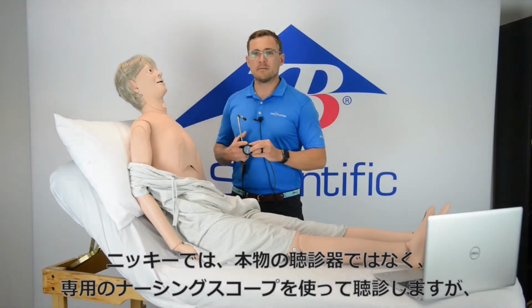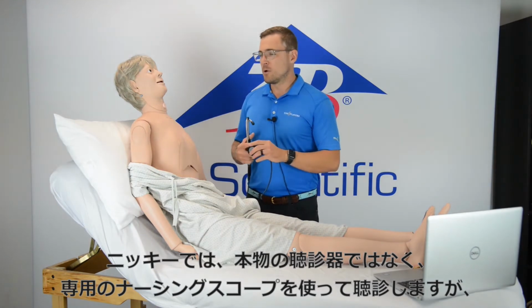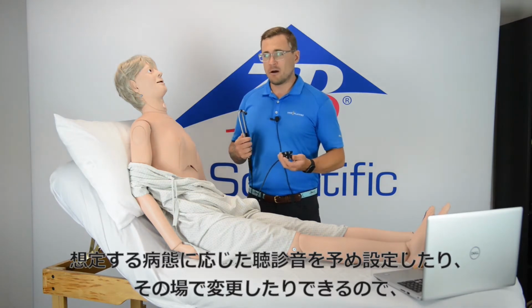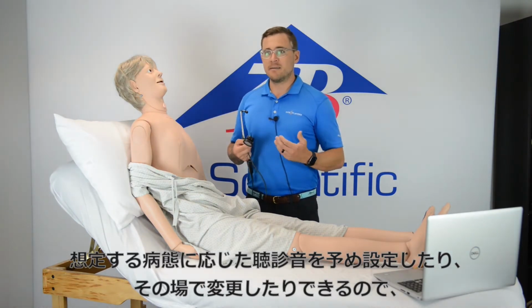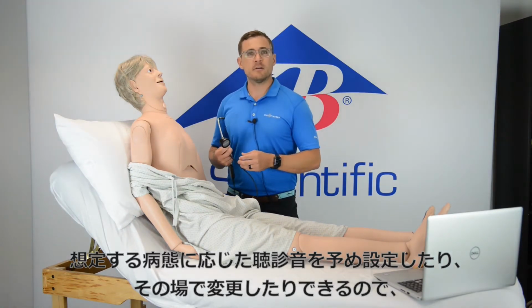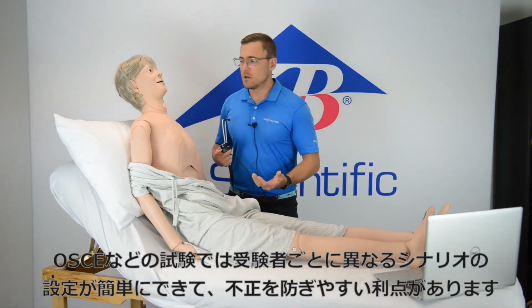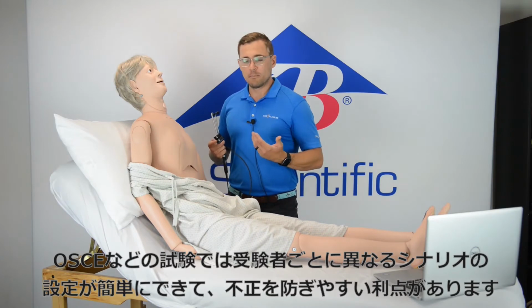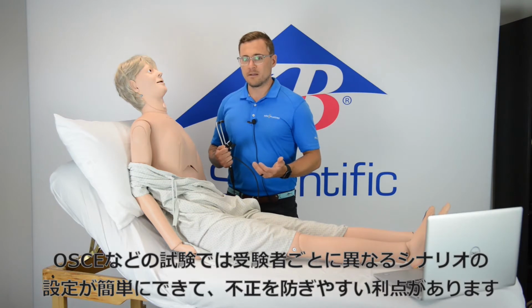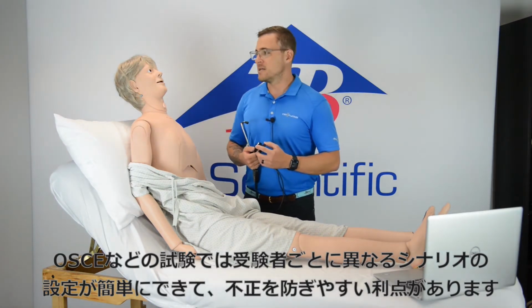So this is a little bit different than some of our other SAM or PAT uses where it is necessary to have the nursing scope. But the benefit of this for sure is as a teacher or as an instructor, you can either pre-program various sounds for different pathologies, for different testing scenarios, or even more importantly, for objective standardized tests to ensure that the cheating or any type of communication from one student to the other is limited.